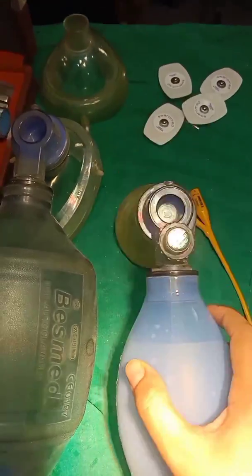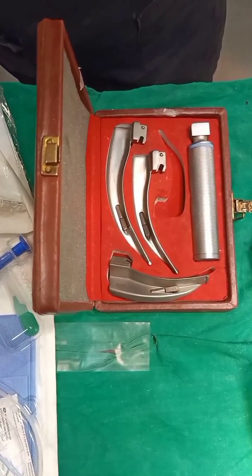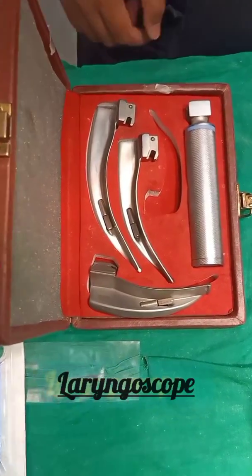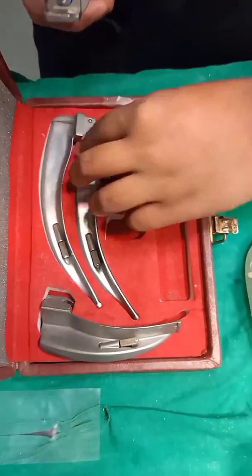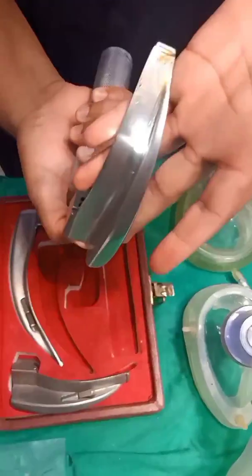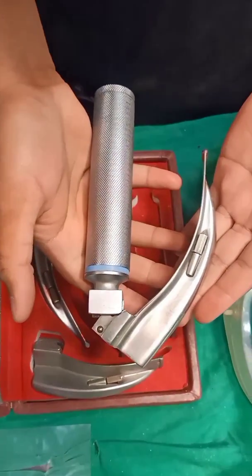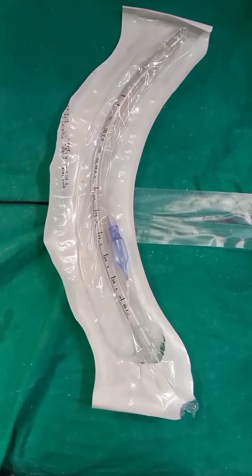They come in different sizes — for adults as well as for pediatric patients. Now you are seeing the laryngoscope on your screen. It has different sizes of blades, a battery-operated system, and a light source. It is used to place the endotracheal tube to manage the airway.